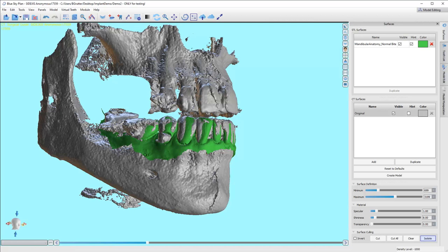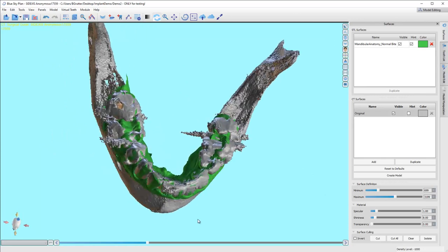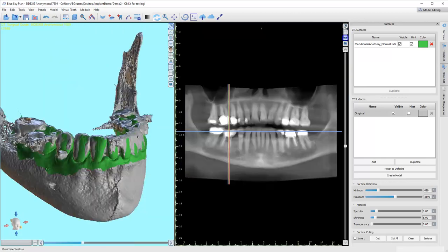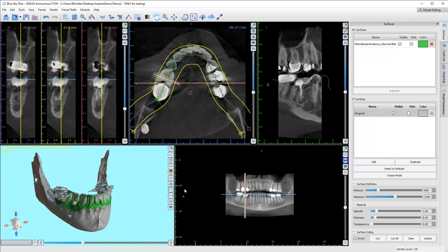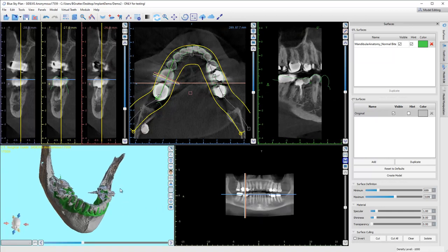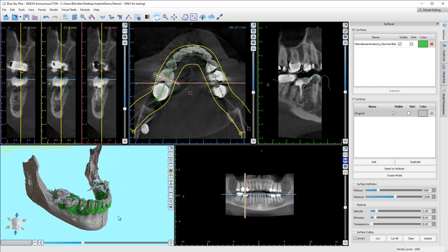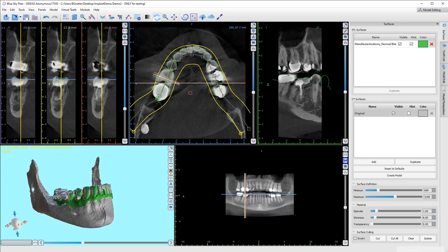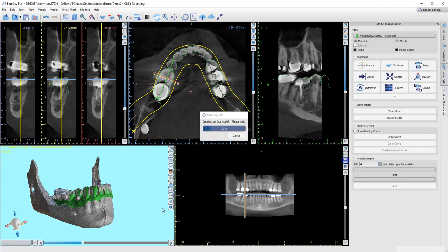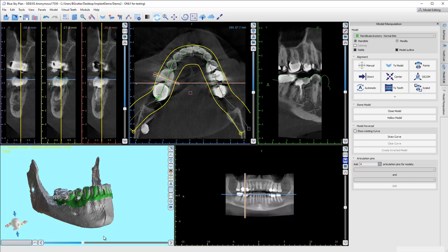All I needed to do is create separation, because now I can make sure it's selected and click Isolate — I want just this lower jaw, so I click on it and it removes everything not touching the jaw. Now we've got just the mandible to work with. Getting the maxilla out of the way — or the mandible if we're working on the upper — is important and will help us a great deal.